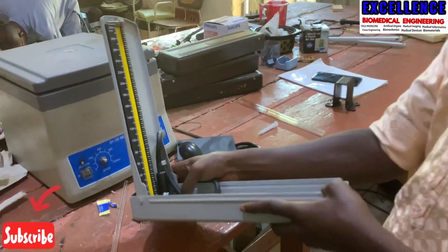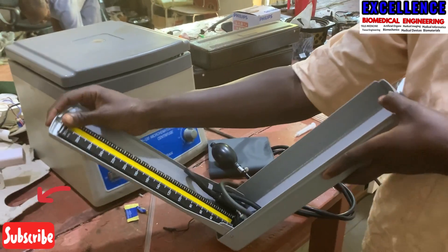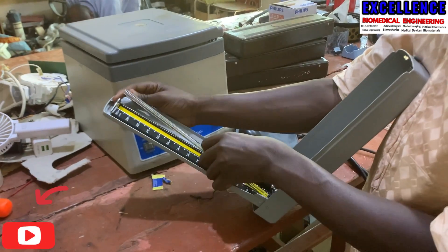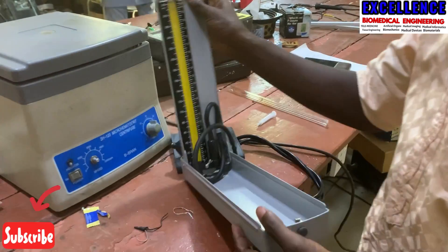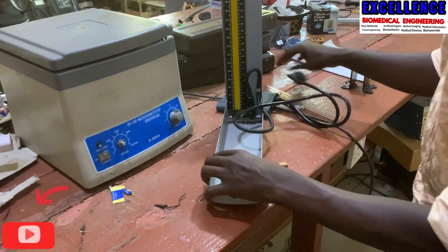After locking the mercury tank, we are good to go. We are now going to tilt the machine again to put it in a safe and easy way — tilting it and using your double thumbs up — and you will see we now have the rod inside.